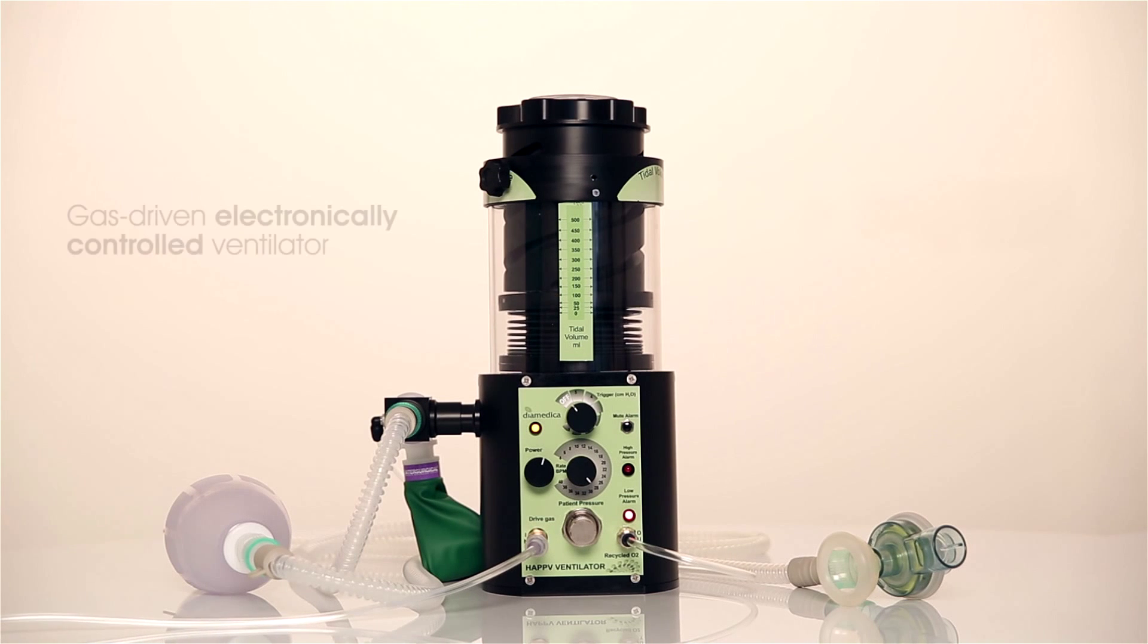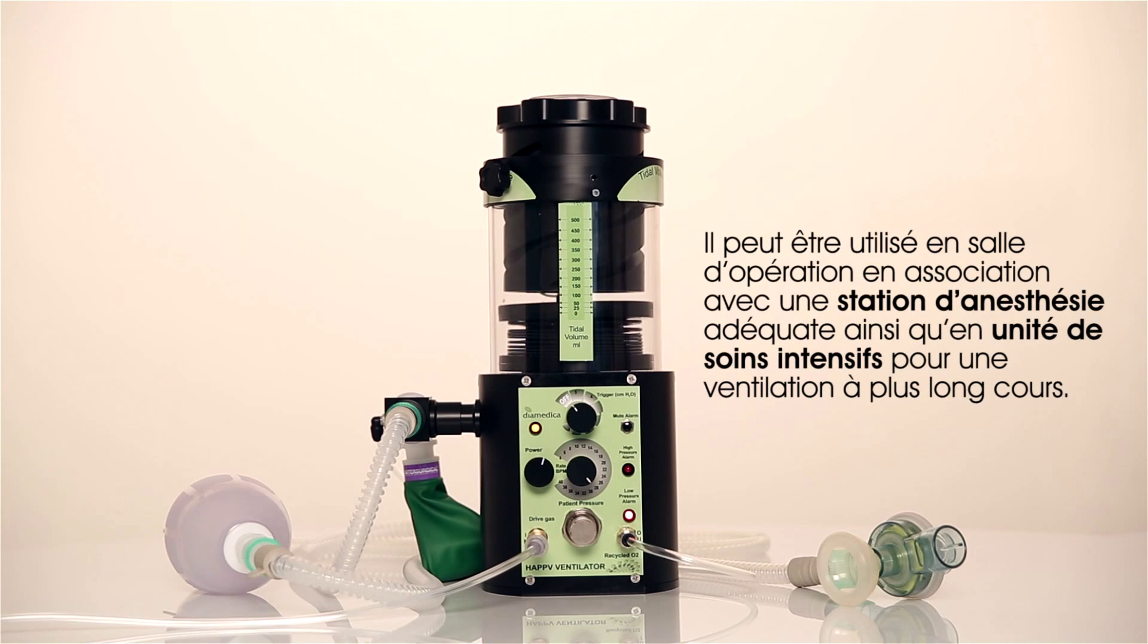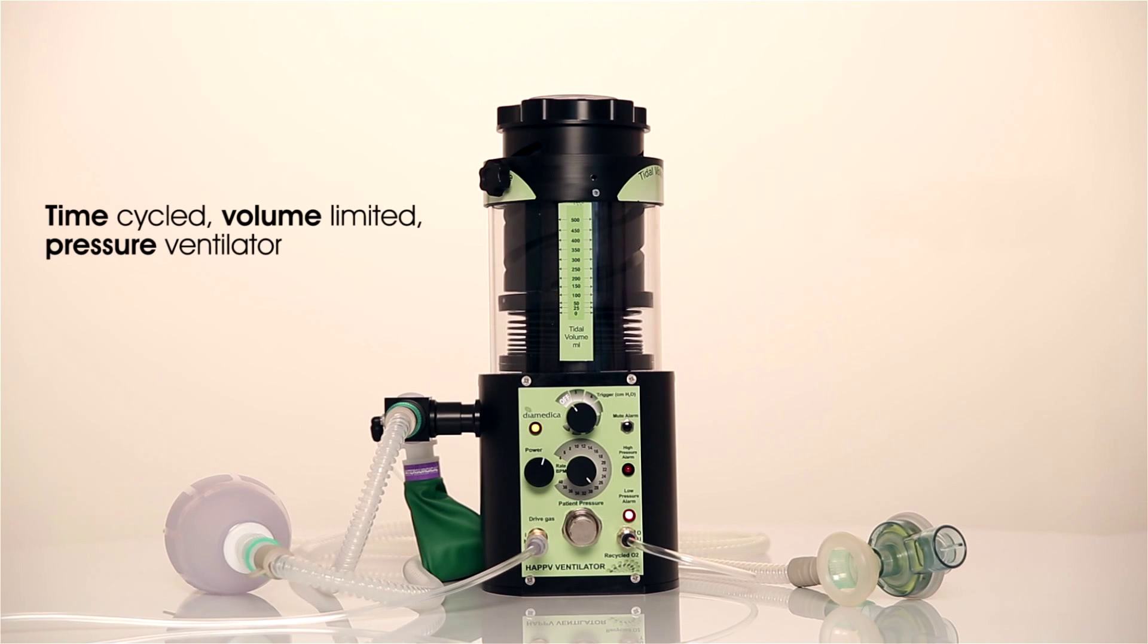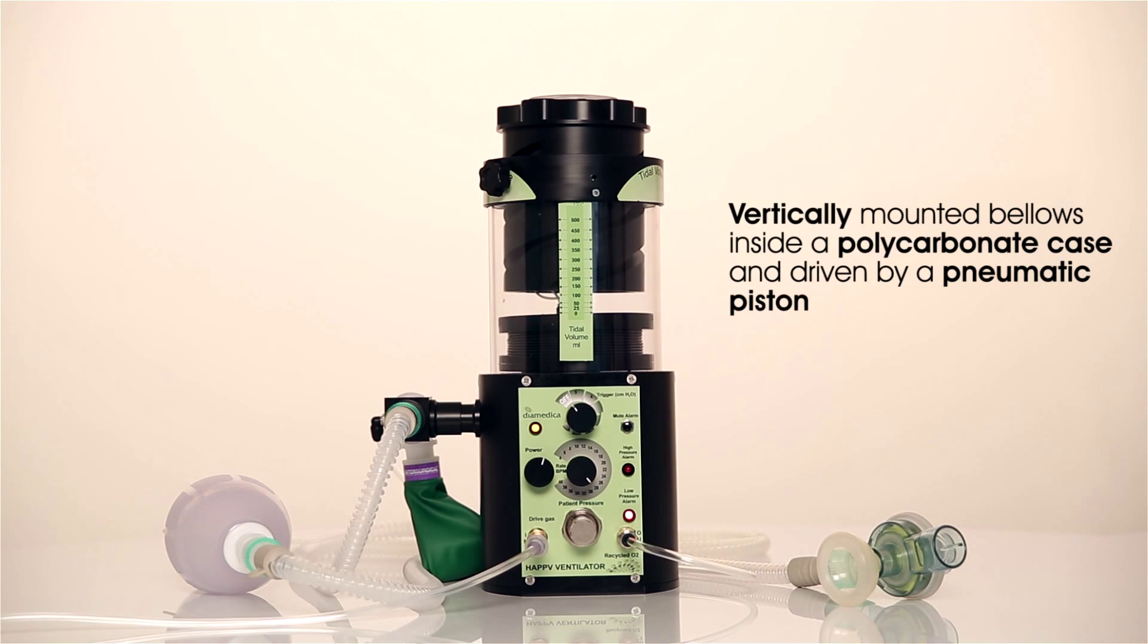The Ventilator is a gas-driven, electronically controlled ventilator. It can be used in operating theatres in conjunction with a suitable anaesthetic apparatus or for longer term ventilation in ICU. It is a time-cycled, volume-limited pressure ventilator with vertically mounted bellows inside a polycarbonate case and driven by a pneumatic piston.